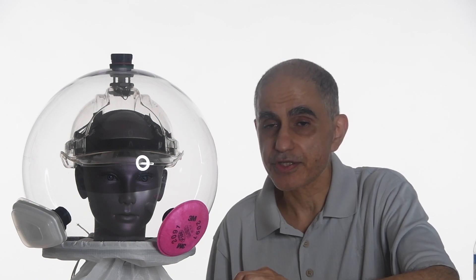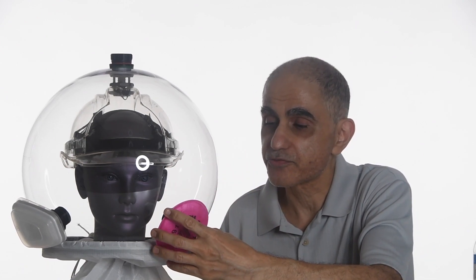The fan is powered by a lithium-ion battery, which is not very big, as you see. It fits in your pocket and then it also has a speed controller that you can adjust. The battery is obviously rechargeable. We view the openings as kind of a port, whether for fresh air or something. So in addition to removing it to replace the filters, we're working on a drinking port.